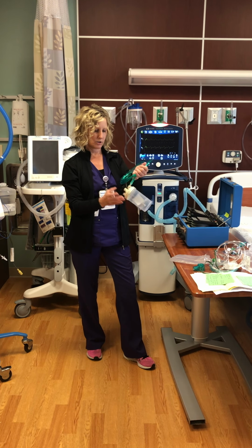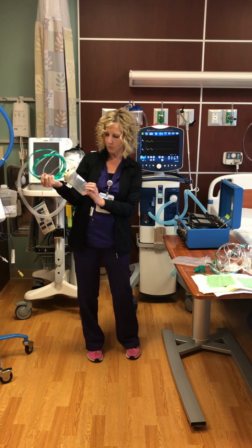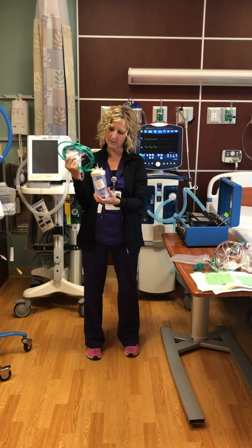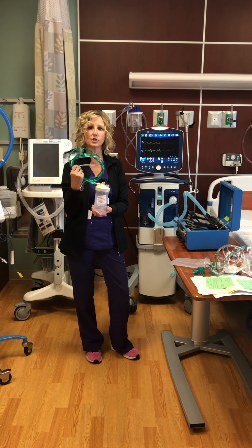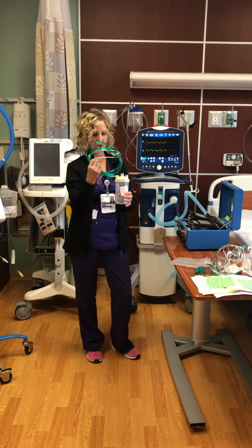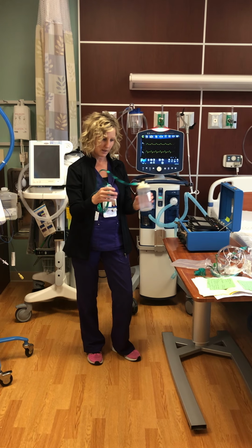Another option, and this is really great, is the high flow nasal cannula. You guys see this all the time. We put a sticker on it because we, respiratory therapy, are the ones to titrate this because of the higher levels of oxygen, FiO2. We fill it with sterile water for humidification. It's a cool humidified system.